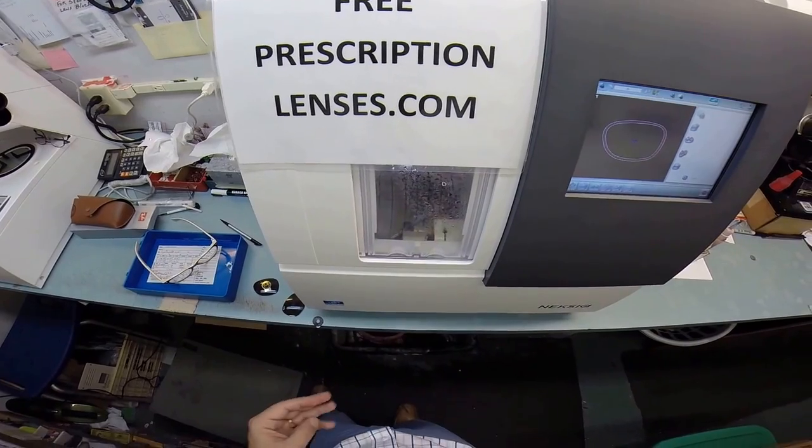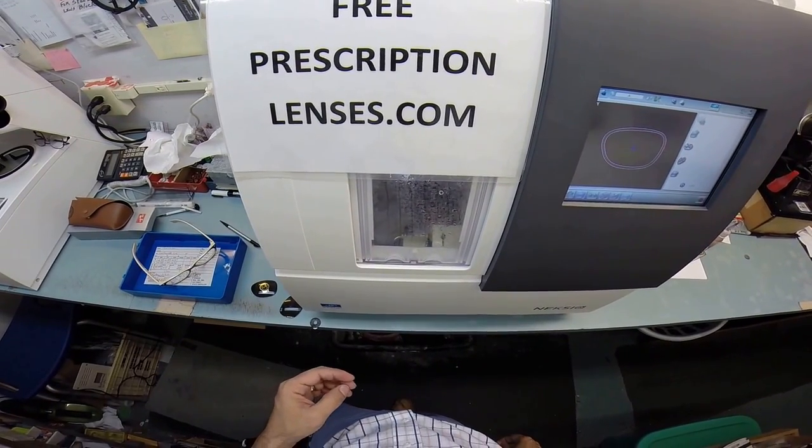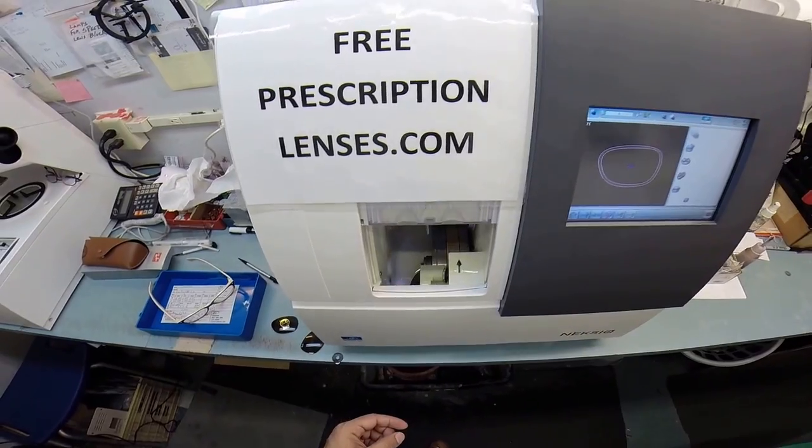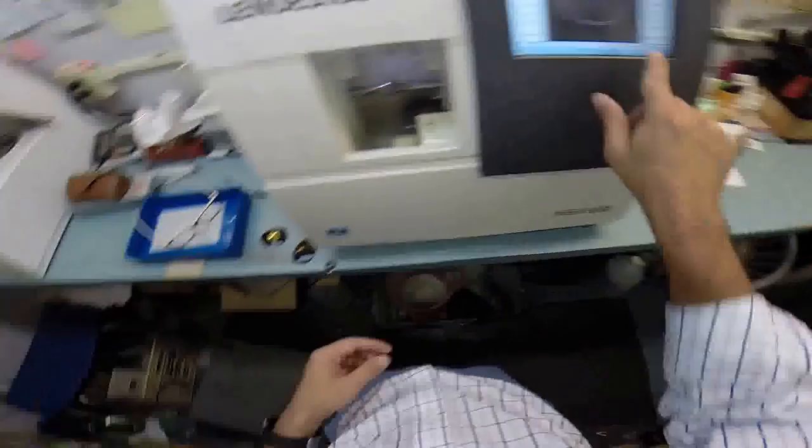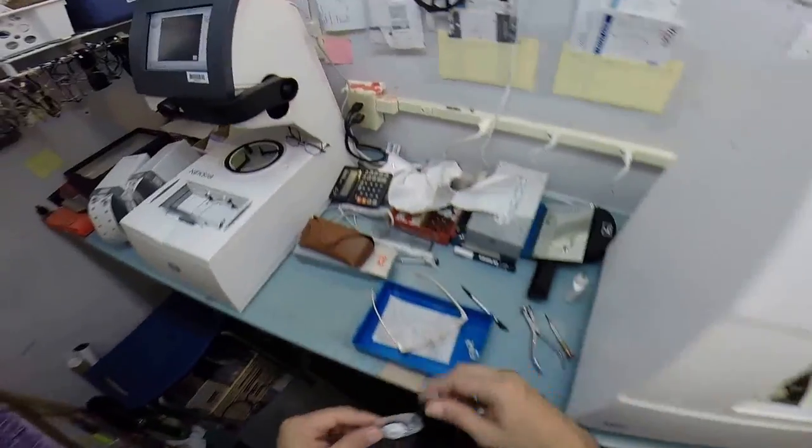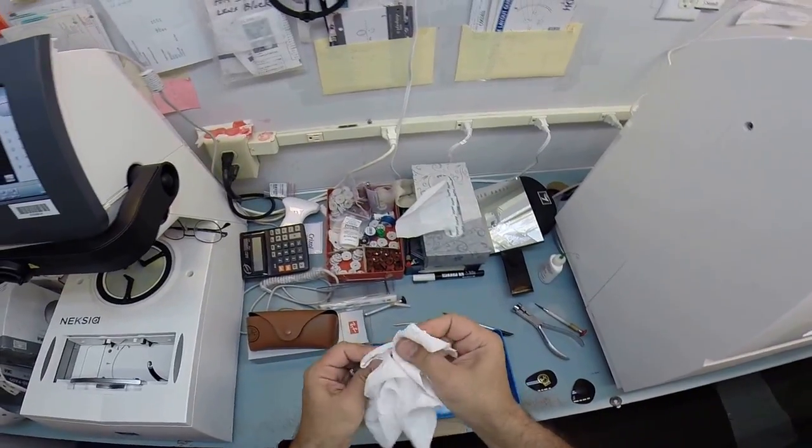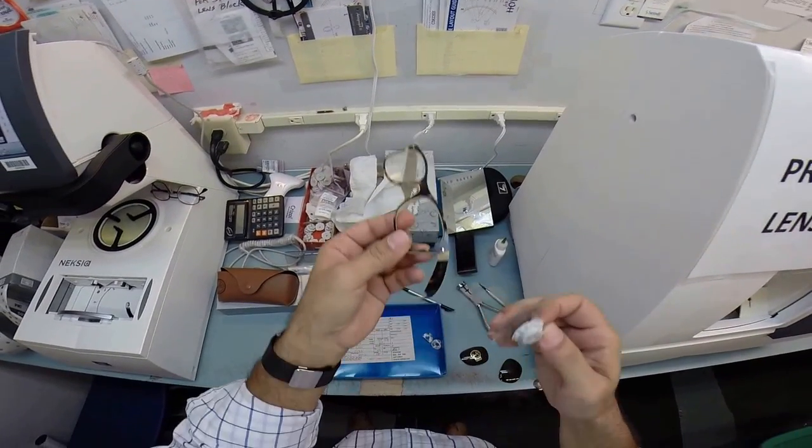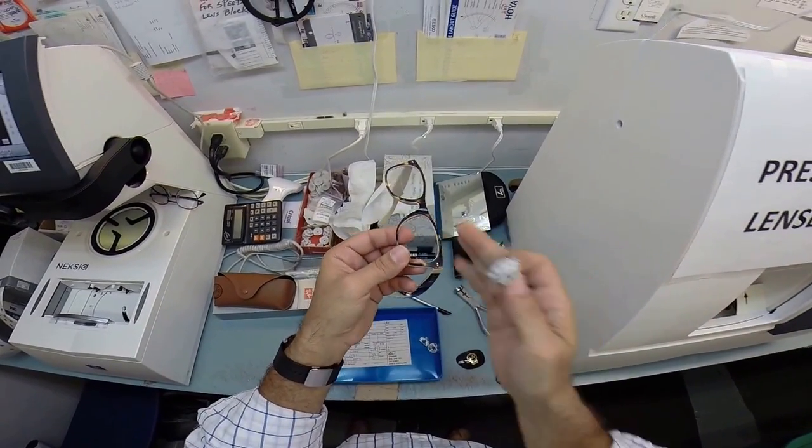So did I hear it getting quiet, which means the left lens is done. When the door opens, it is done. We're good. So I want to open up the chuck. The magnet is holding the lens in place, which is something new for me. I'm learning all this stuff. Take it out. That feels good. I want to tuck it in. I have rotated so the empty side is closest to me. It is perpendicular to my body. I tuck it in at the outside corner first.